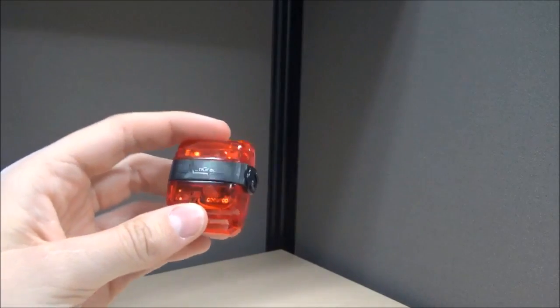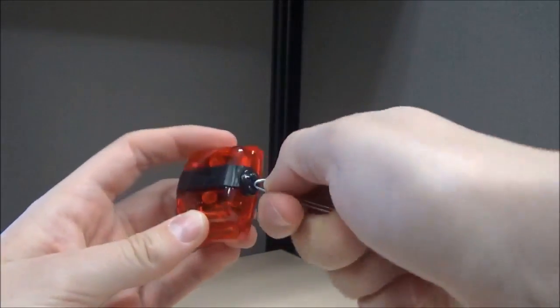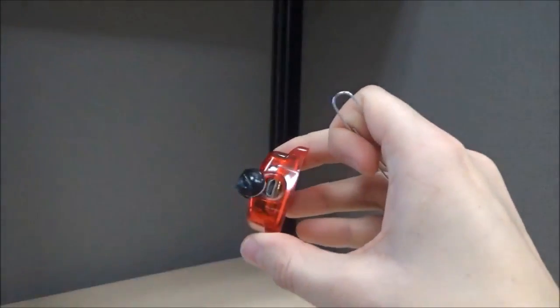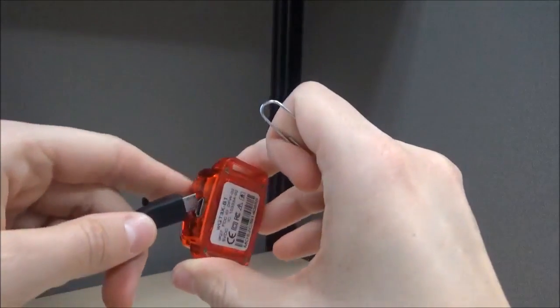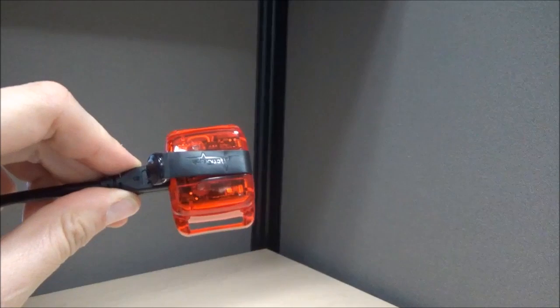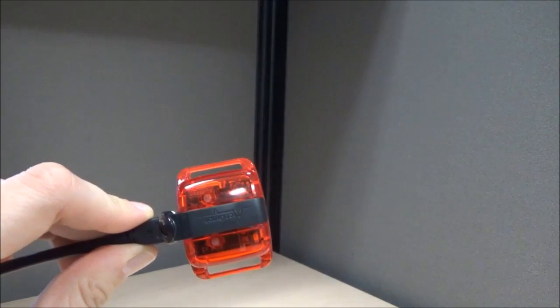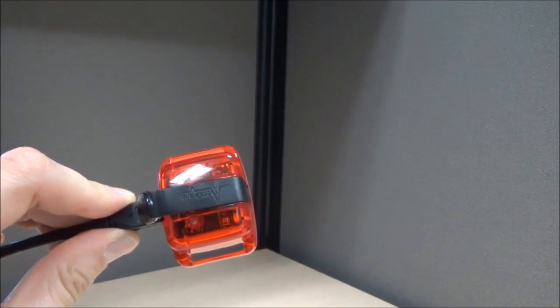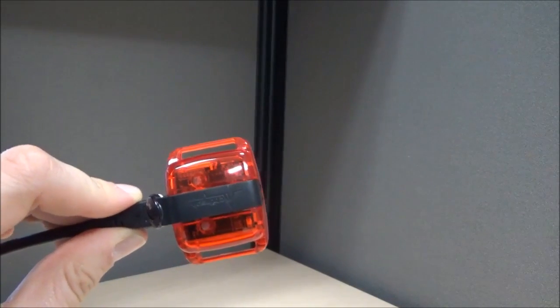In order to initialize your device, unscrew the black knob on the side of the ActiGraph monitor. This will reveal the USB port, which you will plug in to the computer. Once the Activity Monitor is plugged in and charging, it will have a green light that blinks. Once it is completely charged, the light will stay green. The Activity Monitors take approximately 3 hours to charge completely.